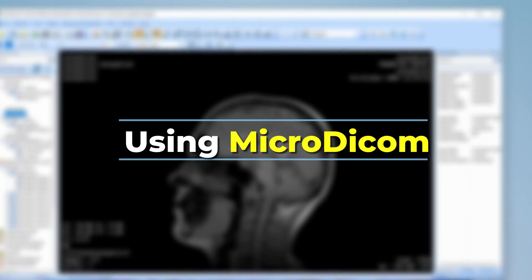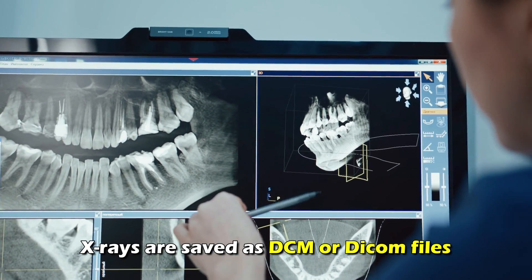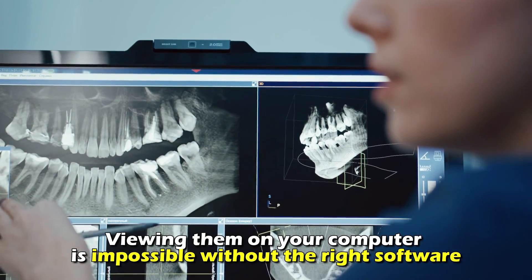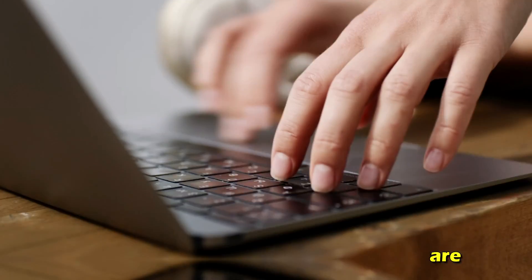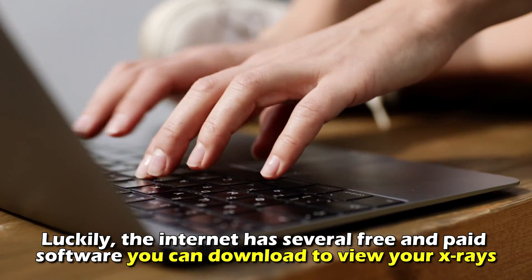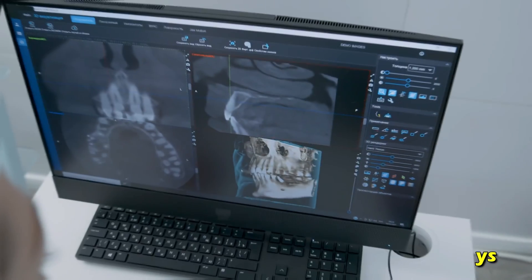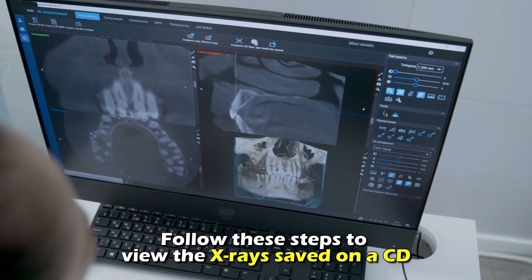Using MicroDicom: X-rays are saved as DCM or DICOM files. Therefore, viewing them on your computer is impossible without the right software. Luckily, the internet has several free and paid softwares you can download to view your x-rays. Follow these steps to view the x-rays saved on a CD.